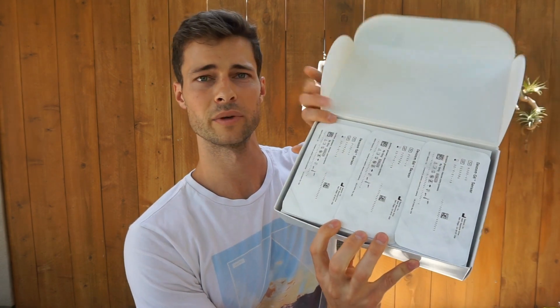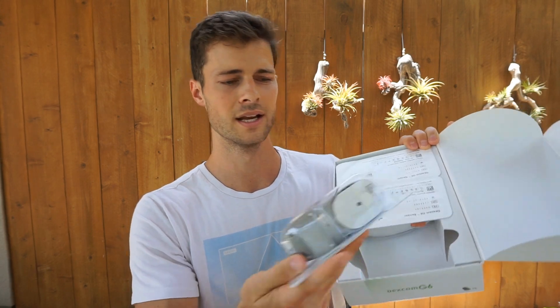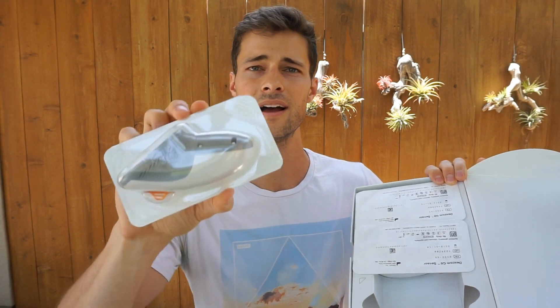So we have the instruction booklet. And we got three — looks like we got three in there, nice. That's good for travel. I was hoping it'd be at least three. That is rather small — smaller than I expected. Got three in there, kind of a cool setup.